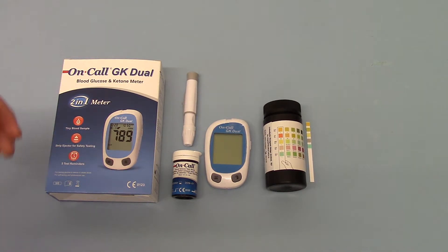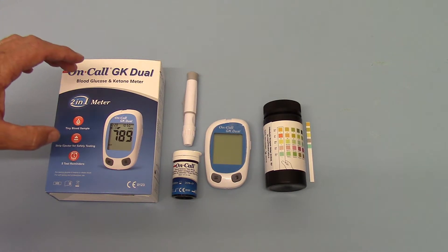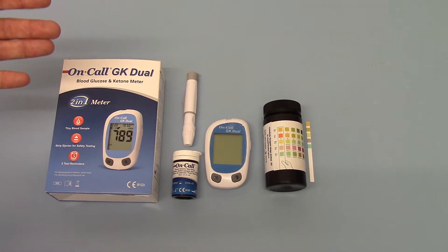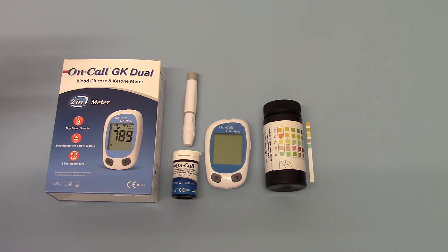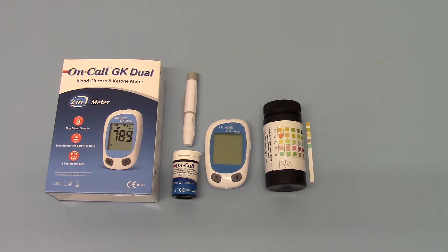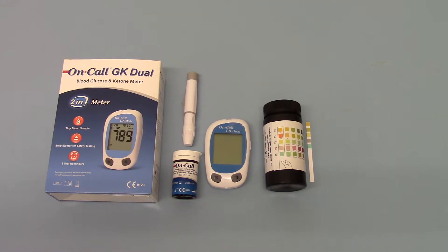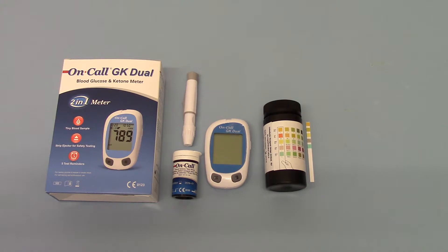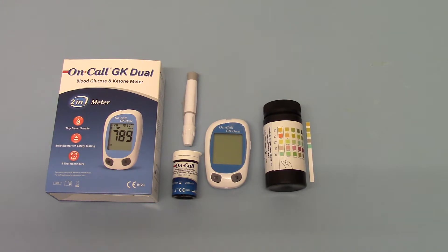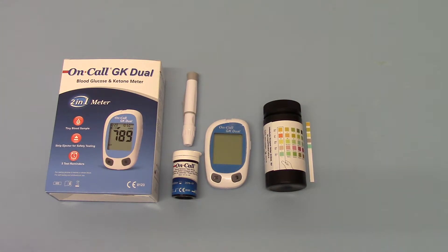Just to put into context how expensive that is likely to be: the meters to purchase are around £30 and should last indefinitely. But the test strips, which have to be purchased separately and don't come with the actual meter when you buy the starter pack, you're looking at around the £20 mark for a pack of 10 strips, so per test is going to cost you around £2.